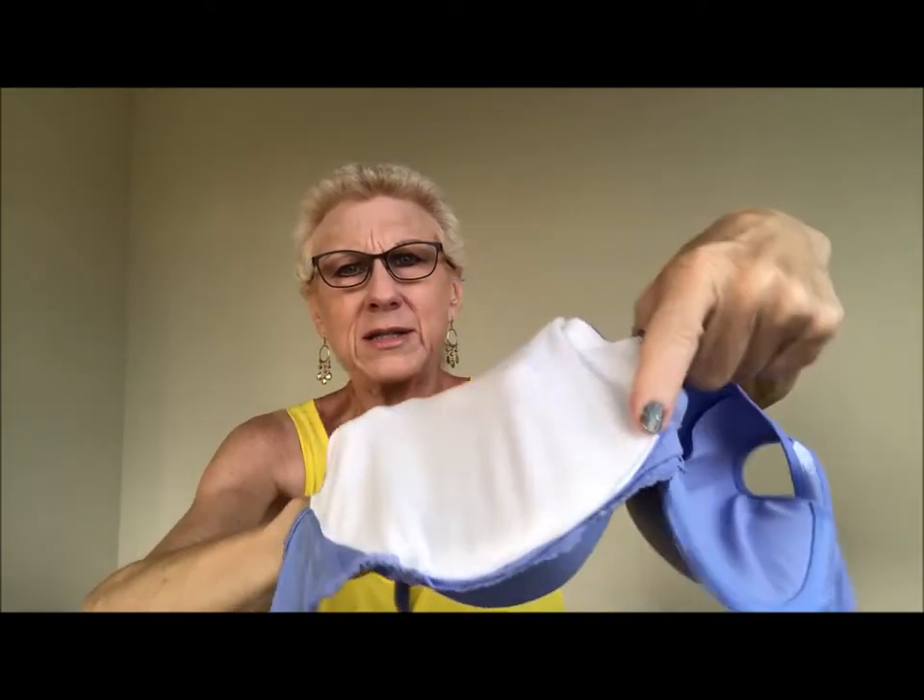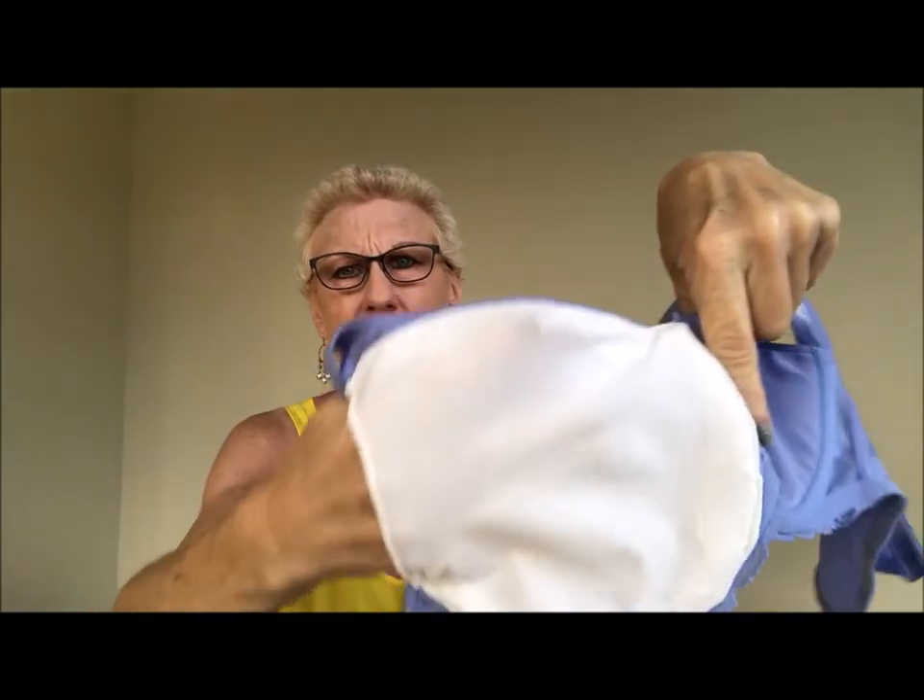I could not have done that well. It's a little rough down here but I didn't have to pay for it. Then you just sort of take the prosthetic and have to finagle it and get it sitting correctly in the pocket — it's not always easy, it moves around in there. After you put it on you have to kind of finesse it into place, and that's it.